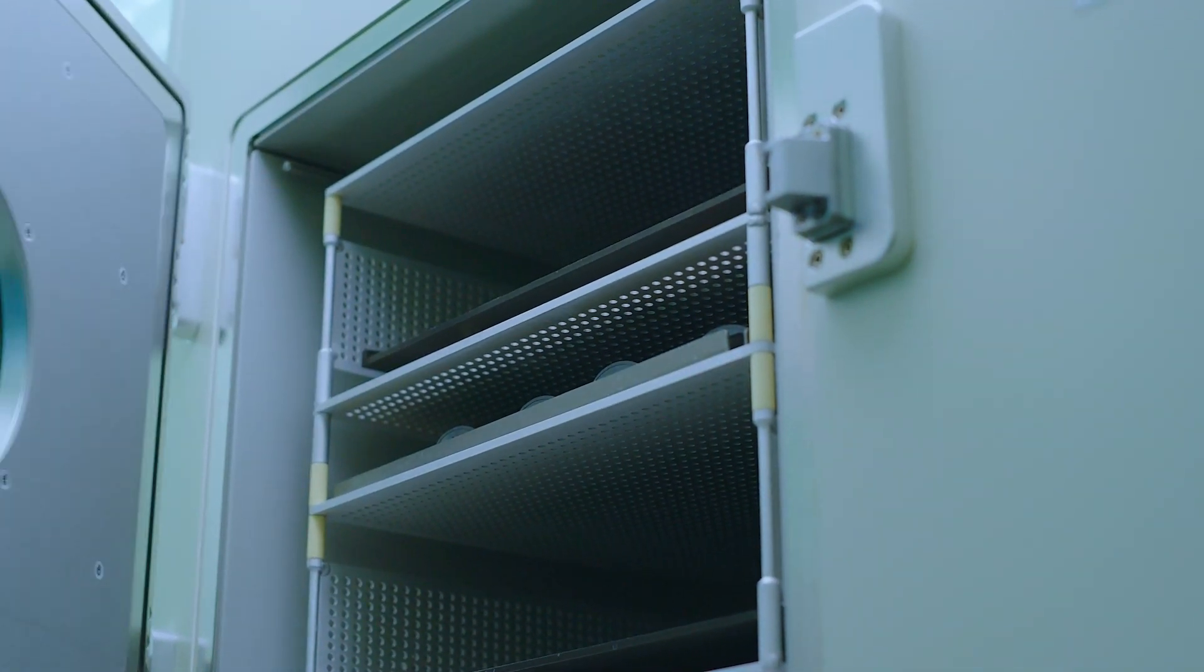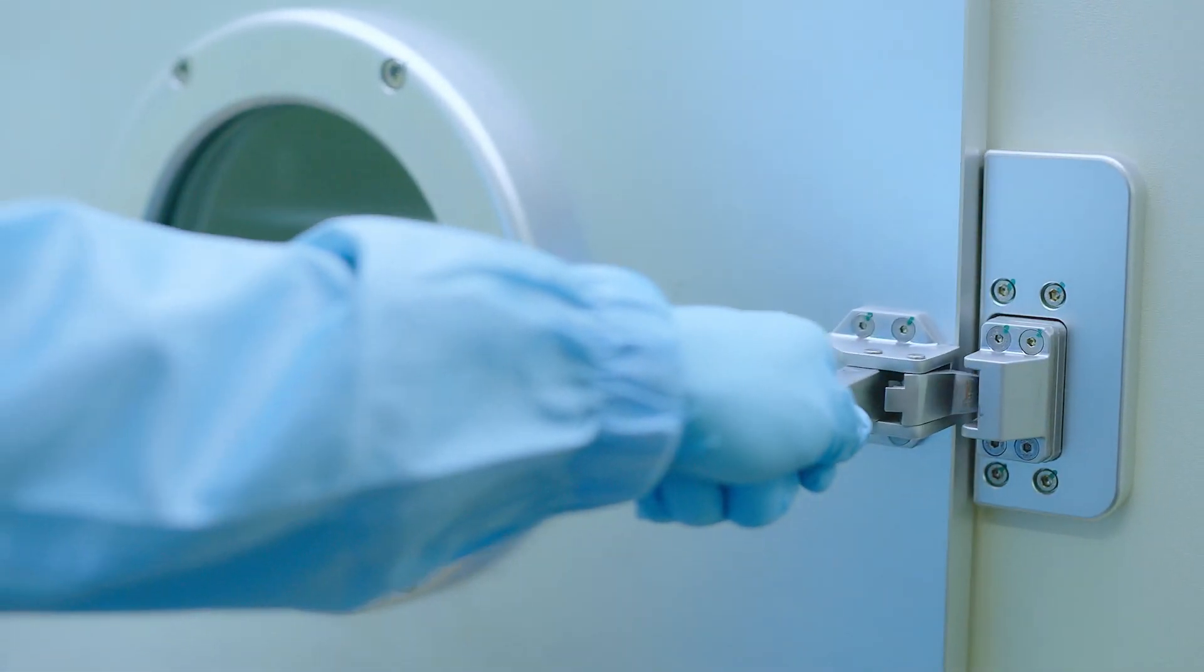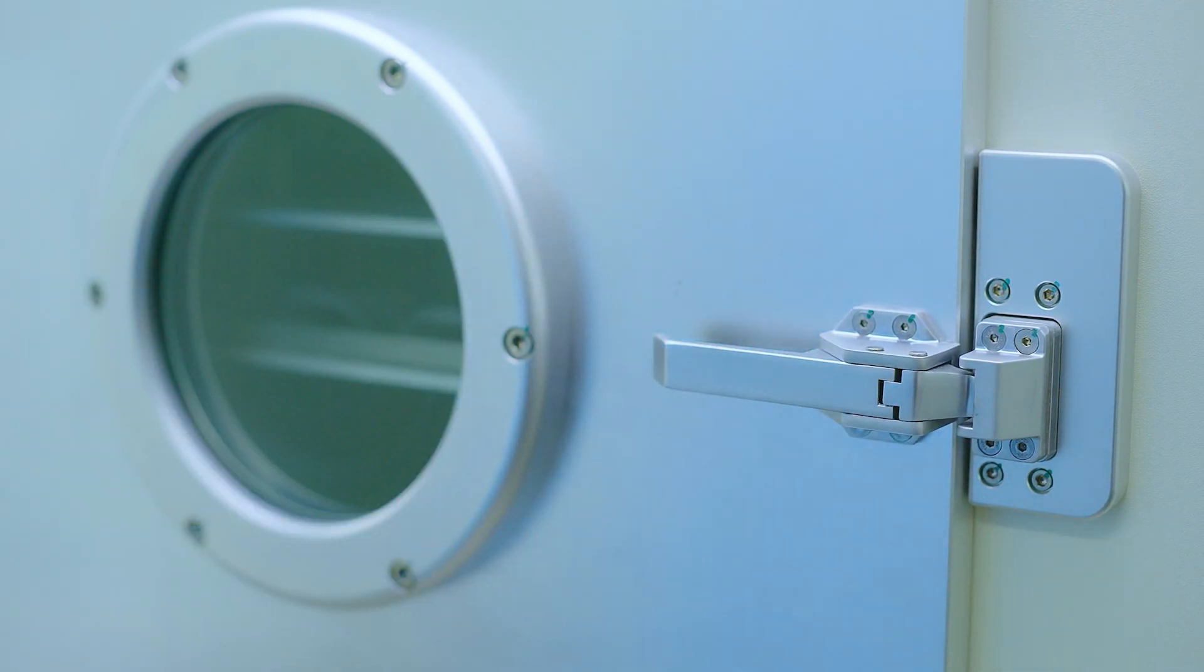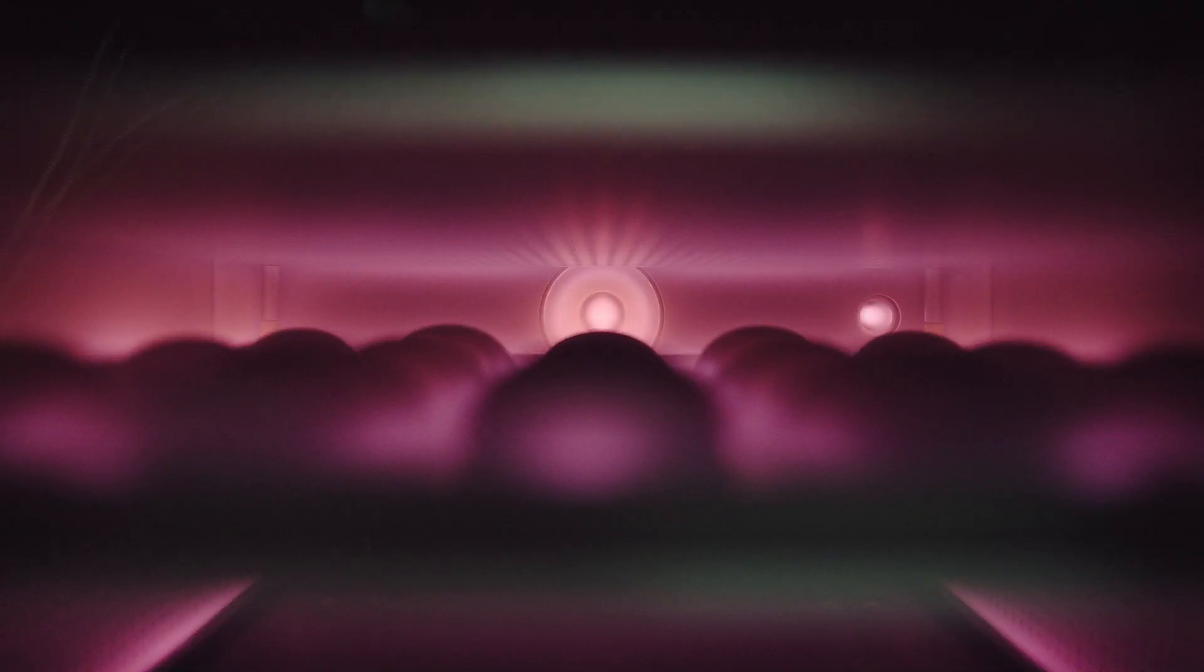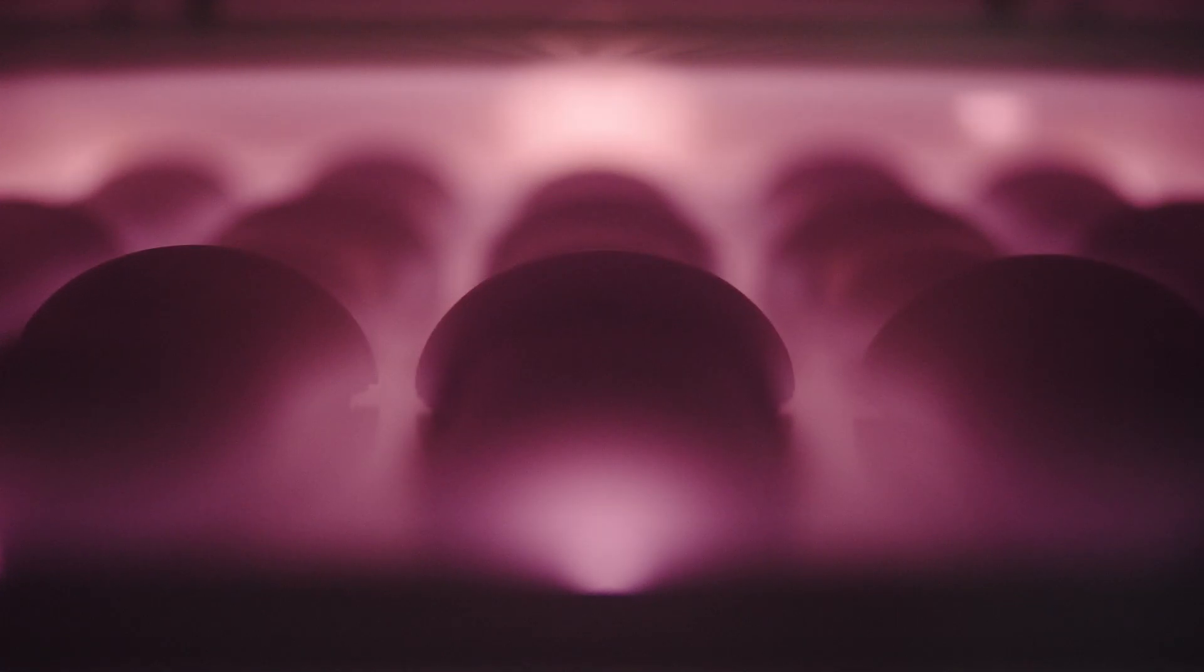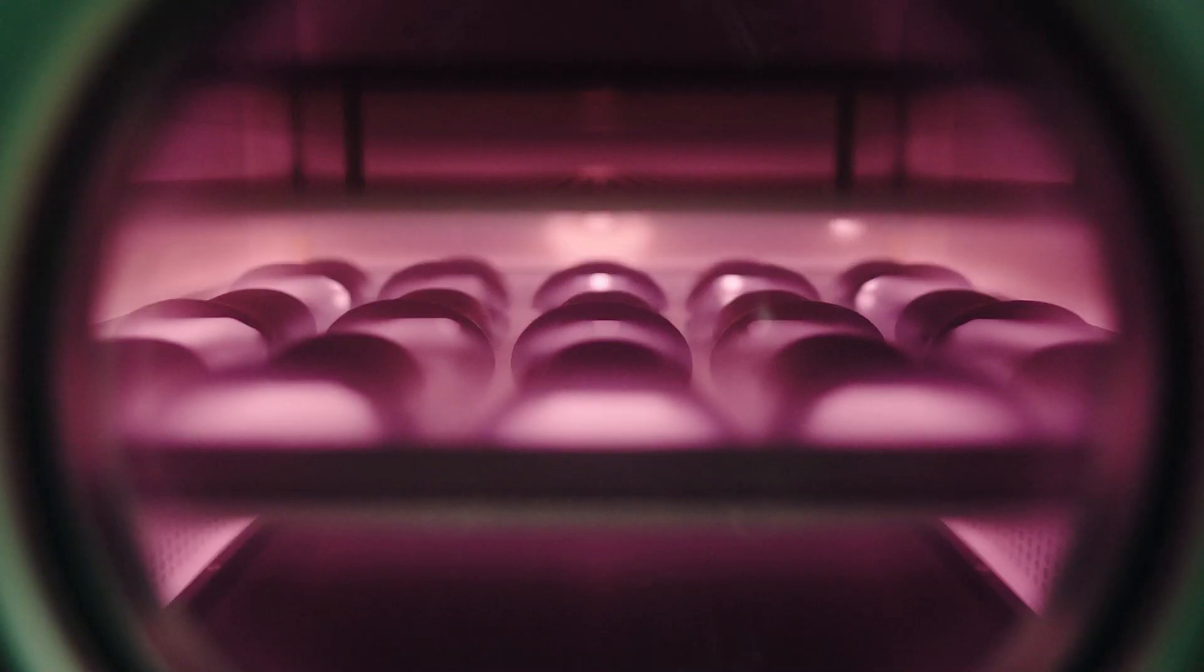Alpinion Medical Systems has developed a unique system to enhance the durability of antiviral coating. By concentrating plasma light irradiation to coat medical equipment, the coating stays on stronger and for a longer time, even with frequent contact.